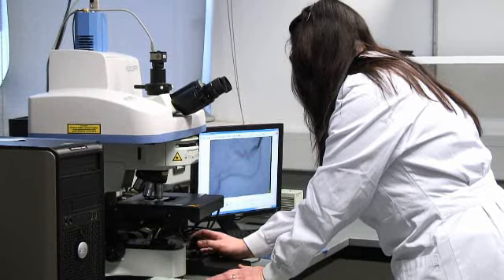Currently the cytologist looks down the microscope and assesses the shape and the size and the staining of cells, and in that way they can tell whether the cells are abnormal or not. But obviously this is very subjective and it's prone to errors, so you can get false positives and false negatives. This is the system.